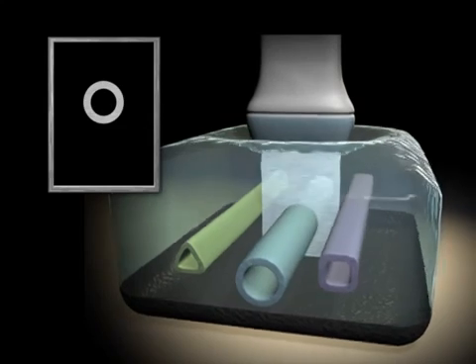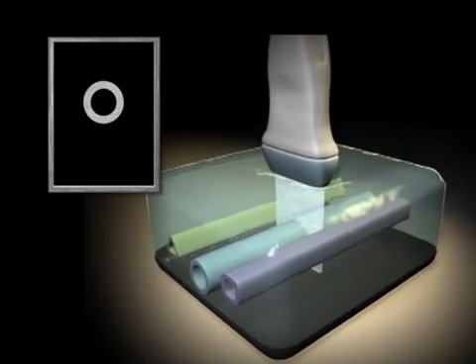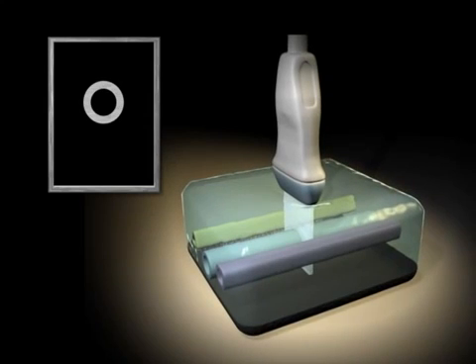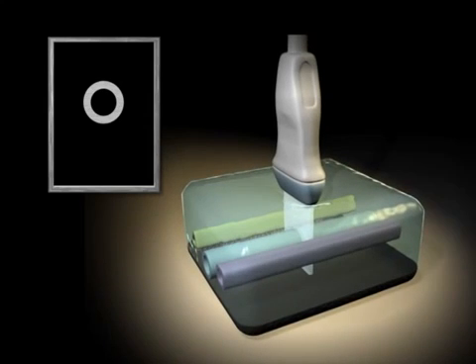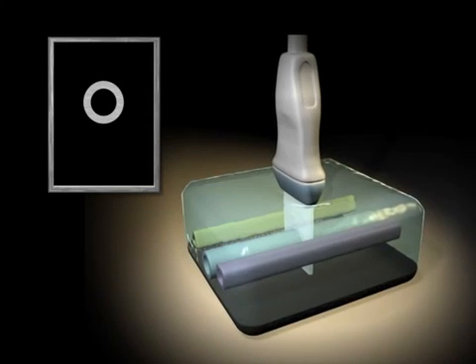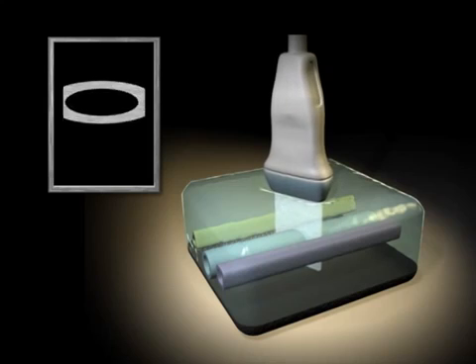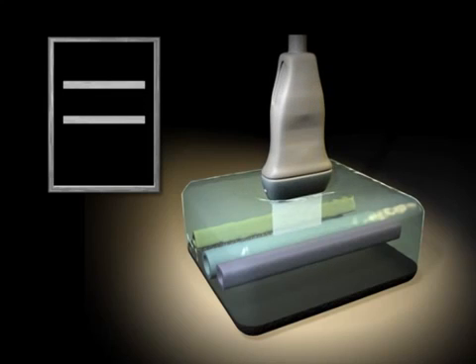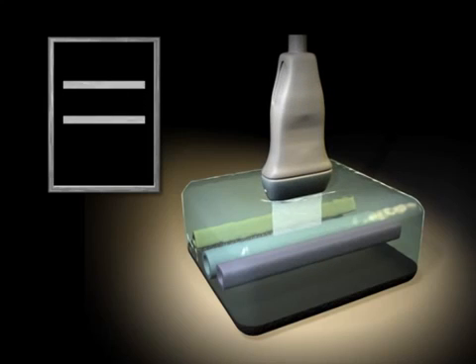We generally image long cylindrical structures with an ultrasound beam that is essentially planar. Short axis imaging cuts the cylinder transversely, revealing a circle. Long axis imaging cuts the cylinder longitudinally to create two parallel lines. Long axis imaging is of limited use in ultrasound guided peripheral nerve blocks.